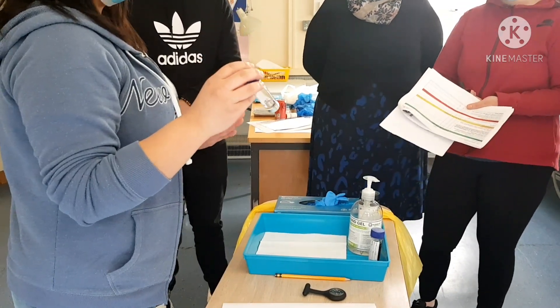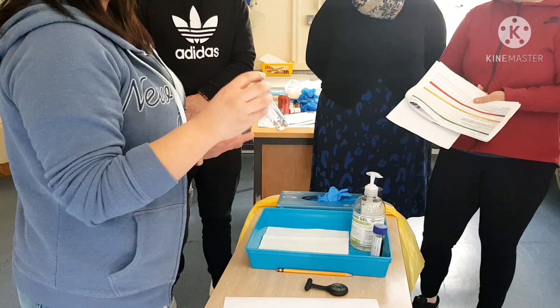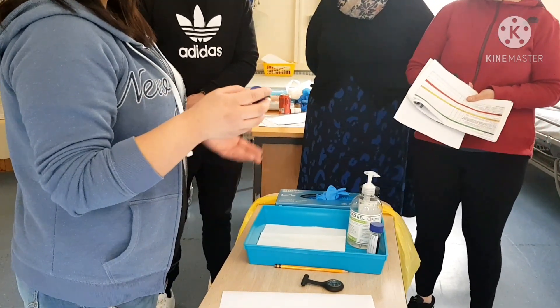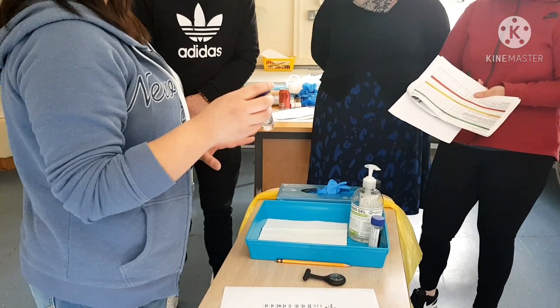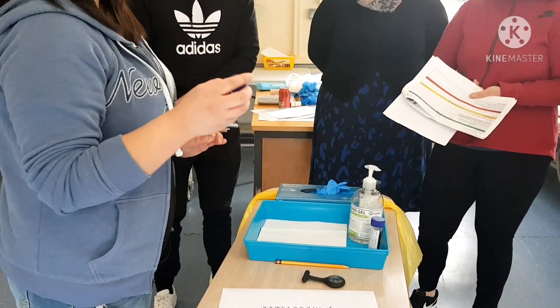I will also make sure that the patient is going to pass urine continuously, and to catch the middle part of the urine — what we call the midstream urine. After catching the midstream urine, the remainder of the urine the patient will just pass out continuously. Then I will ask my patient to come and bring the sample to me.